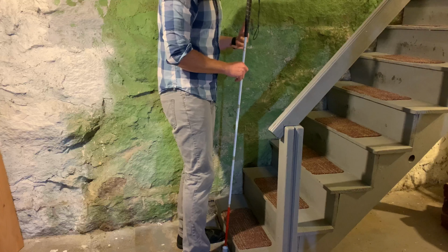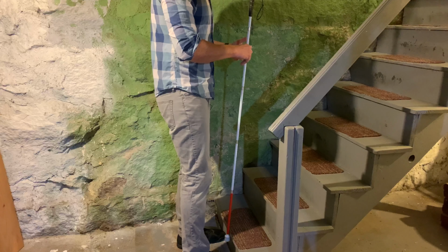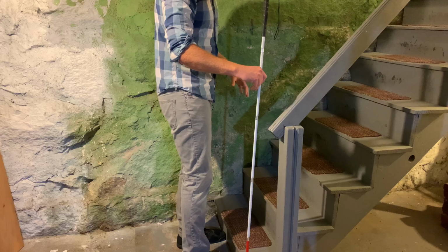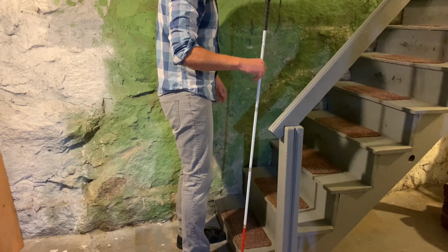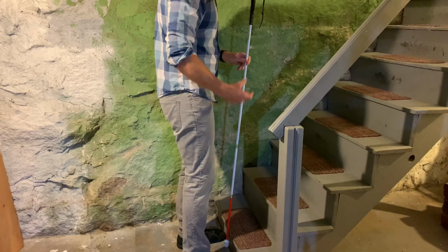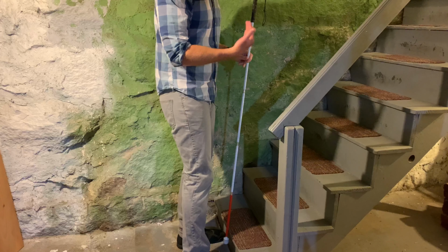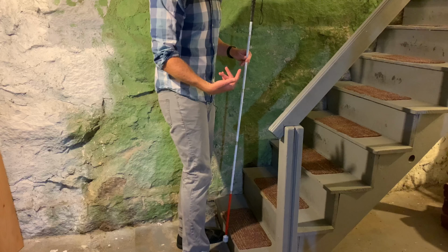So step four is a way of checking where you are on the stairs. To do that, you bring your cane up off the ground, maybe about 6 to 10 inches, and you're going to move it right along the lip of that first step. So if you're moving right, you're going to want to use your right hand to do that. And then you're going to try with your left hand. So you switch hands. Again, still pencil grip. Use your left hand and move it left. This way you know exactly where your placement is on the stairs, if either you're too far left or too far right, as well as locating hand railings if the stairs have some.